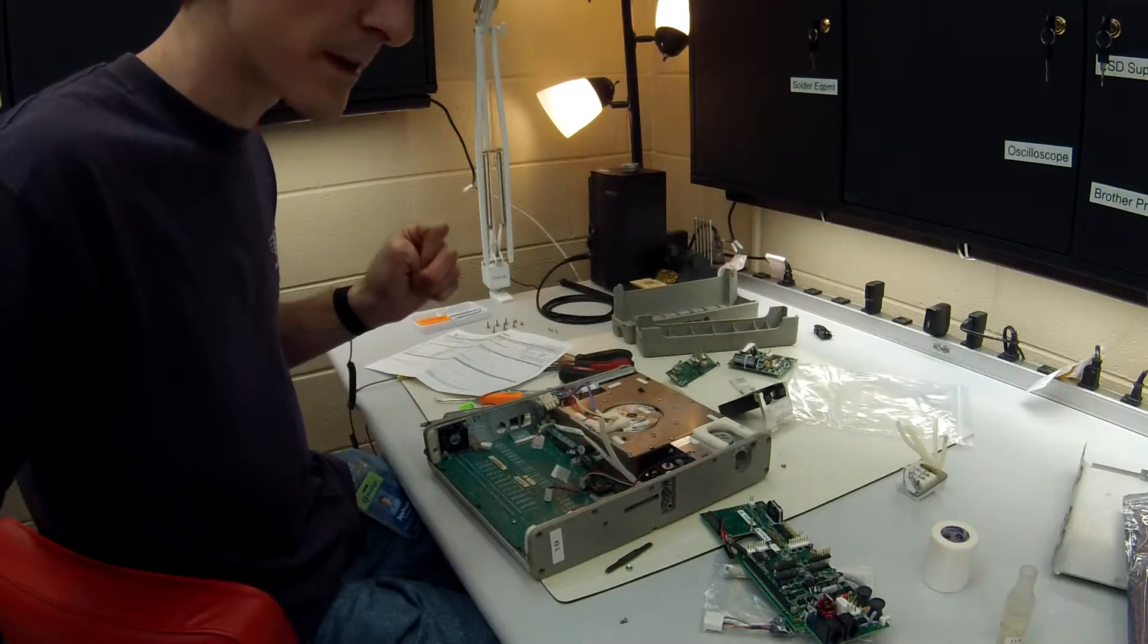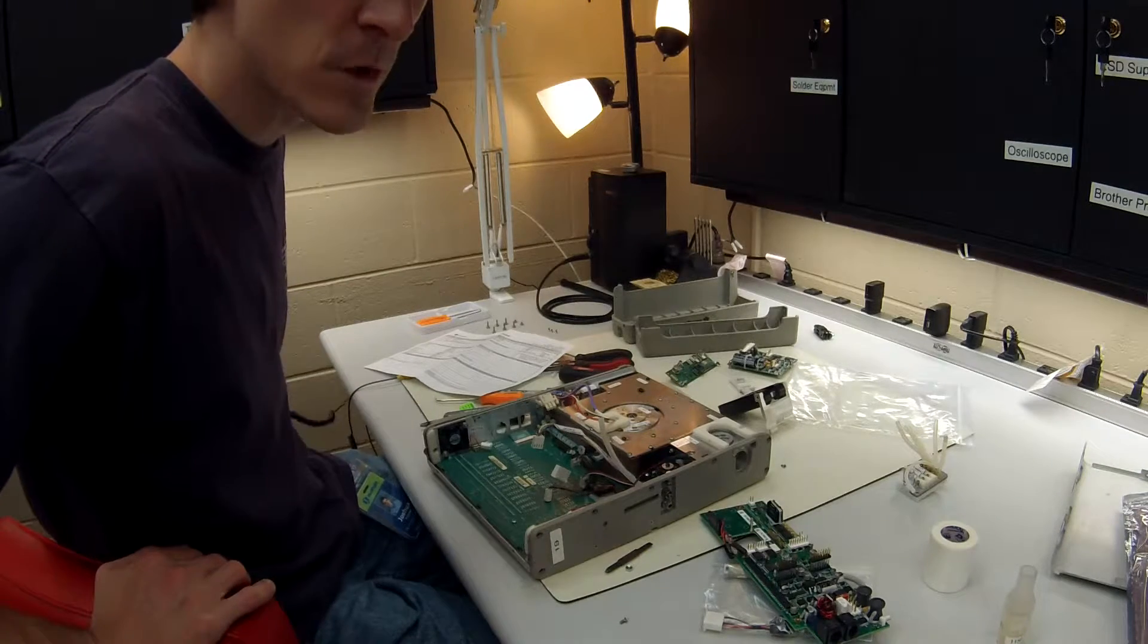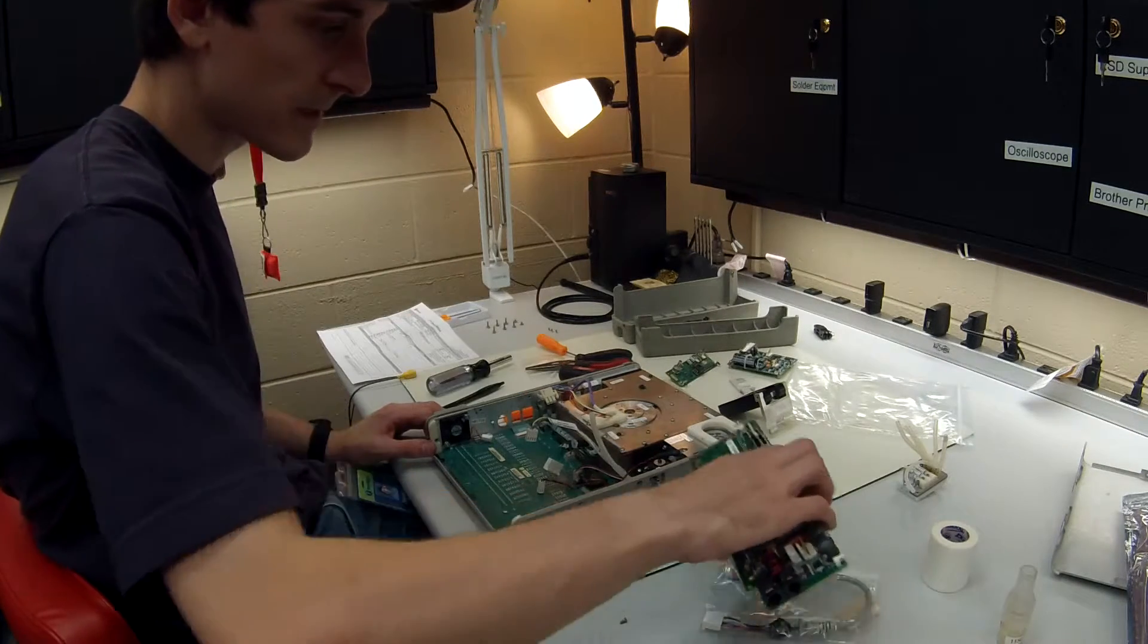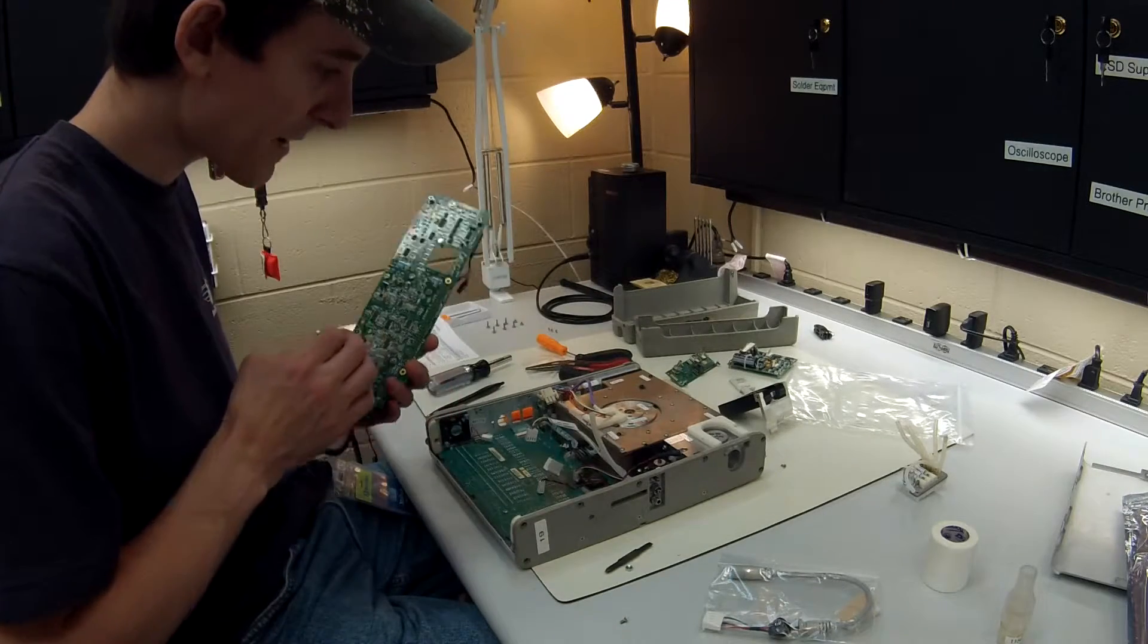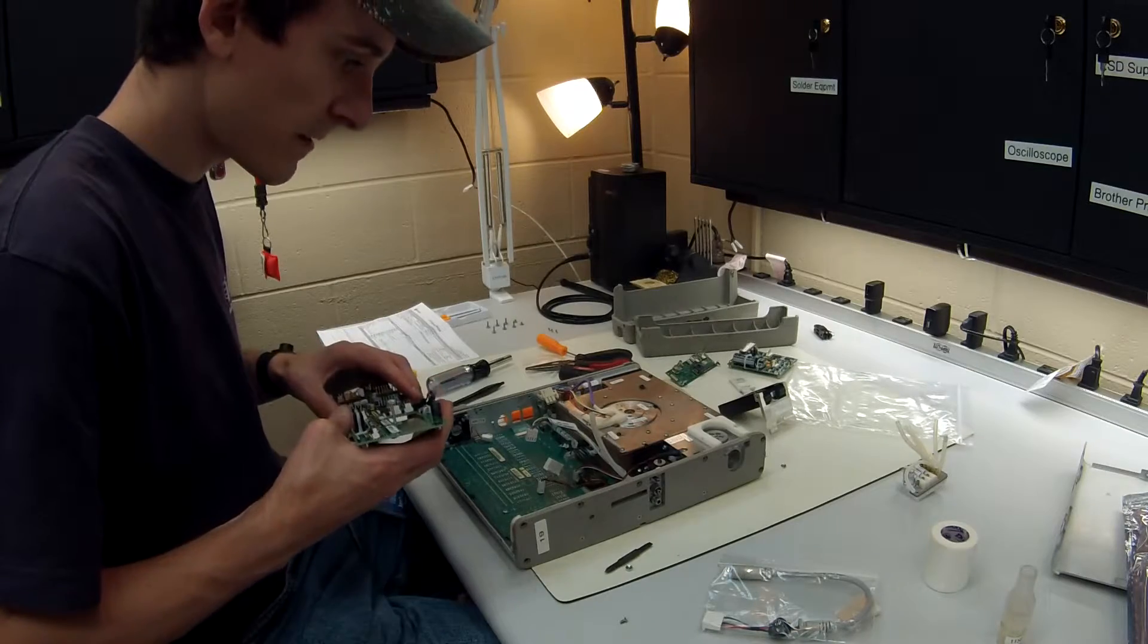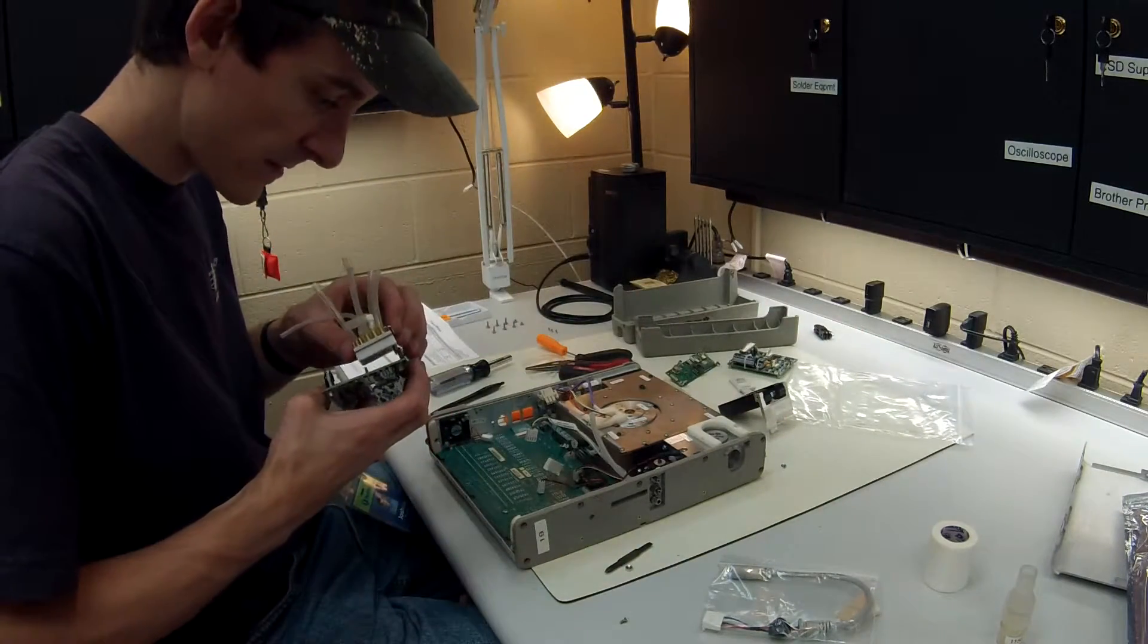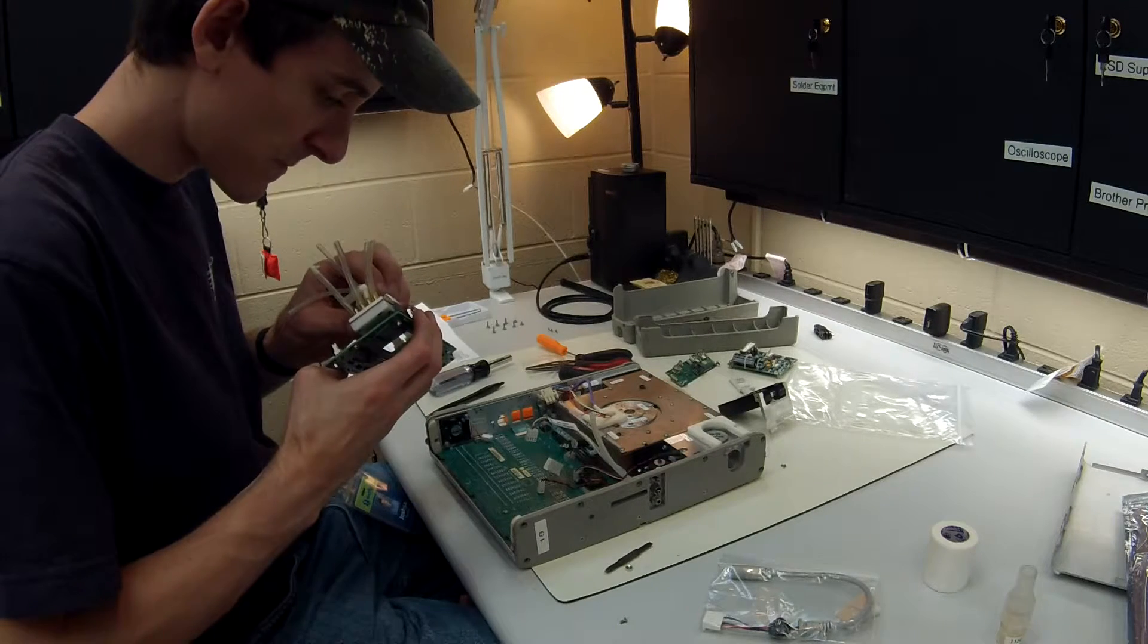So make sure to get that or a lady at Carefusion will hound you about it. Alright, next step is putting our brand new power board back in followed by solenoid manifold. Actually we can do that right now, it's going to be very difficult to get in later. So you're just going to want to slip this back in.